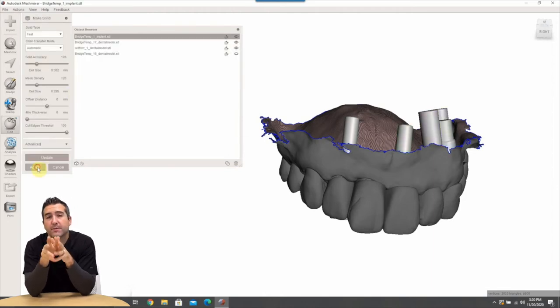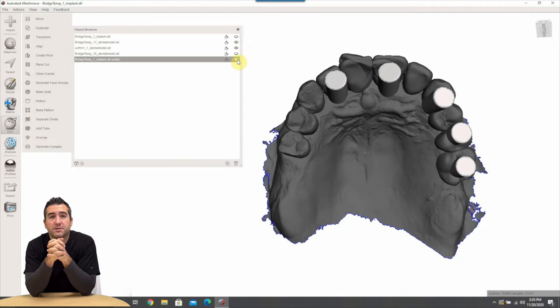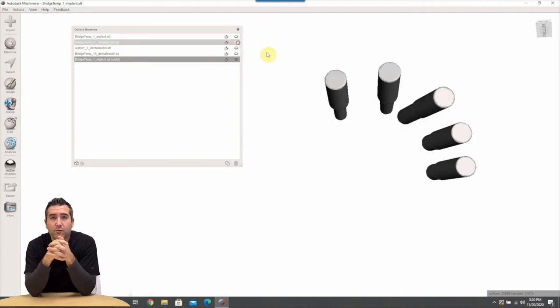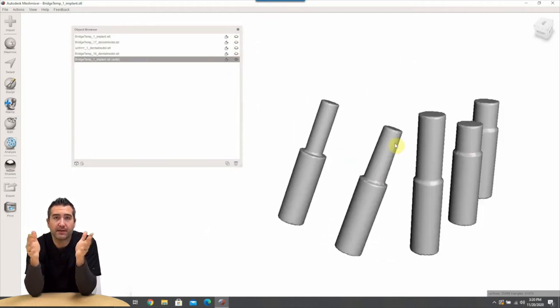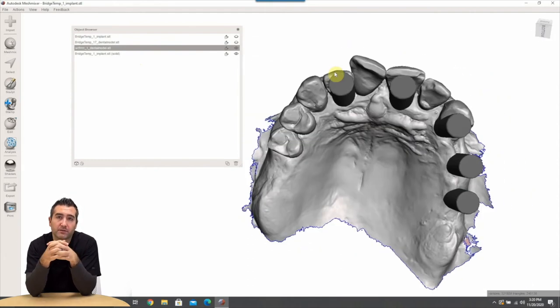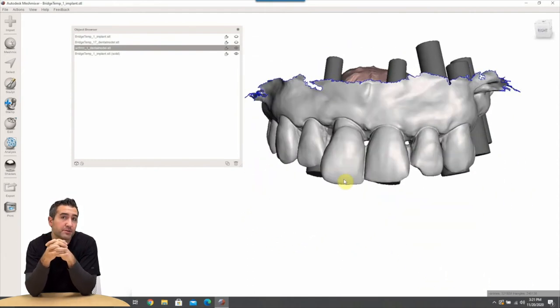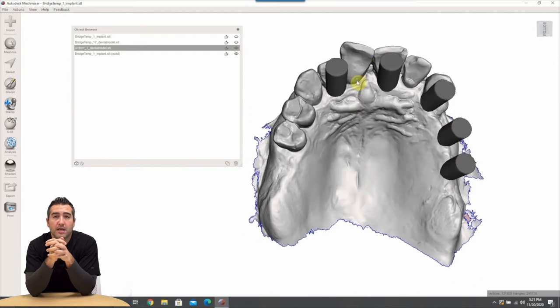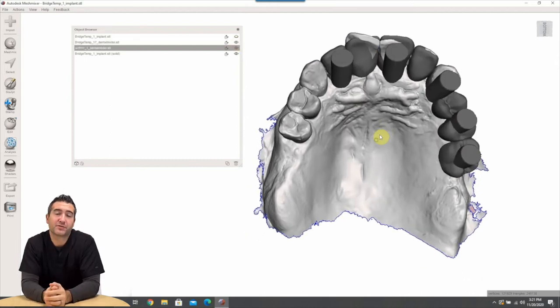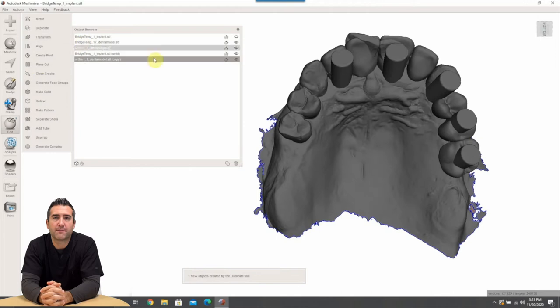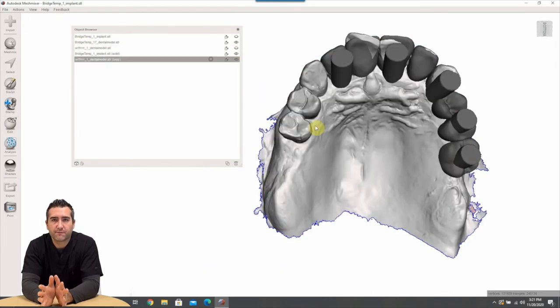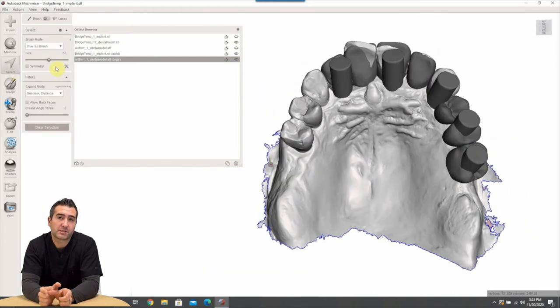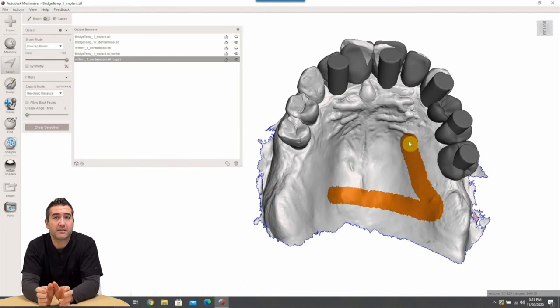But for zero dollars you could put it into Meshmixer here and what we're going to do in Meshmixer, you can see all the files, the extension tubes are there, the implant locations are there, the wax up there, the original intraoral scan. We're going to go ahead and make a pre-surgical prosthetic here. This is the same way we do our hybrids as well. So the first step is we need to make a vertical stop on the palate and we're going to make a little kind of little mini palate denture.